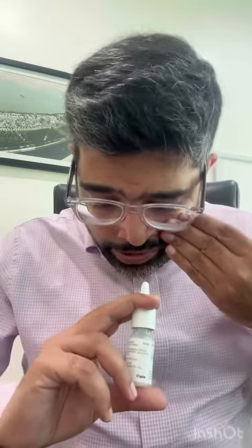With your left hand, pull your left cheek out, bend down, take the spray this way, and make sure the bottle is straight. Put it in your nose, turn it slightly towards your eye outwards and spray. Look up and breathe through your mouth for a few seconds.